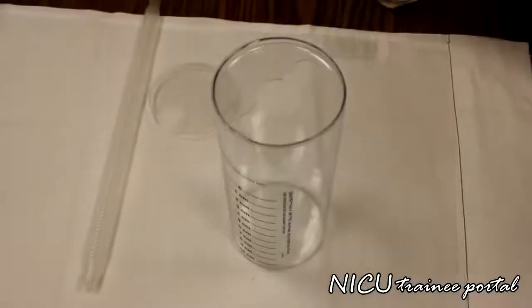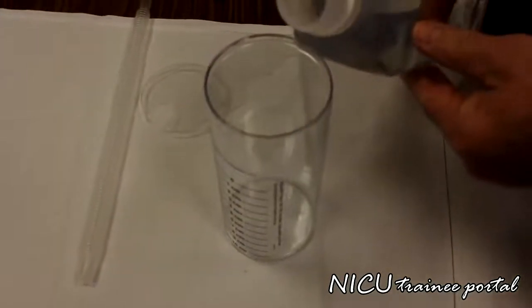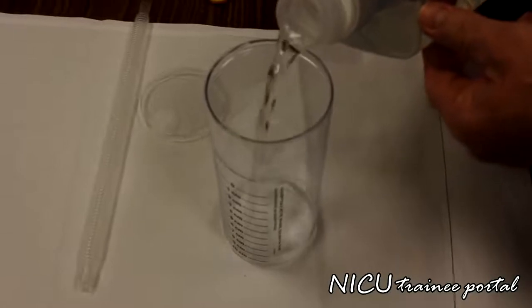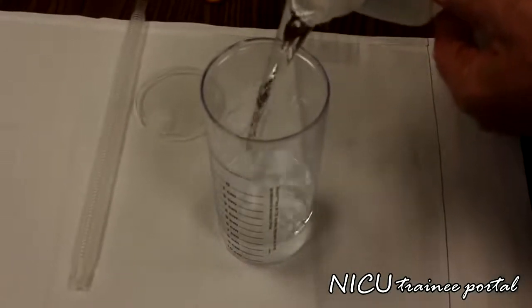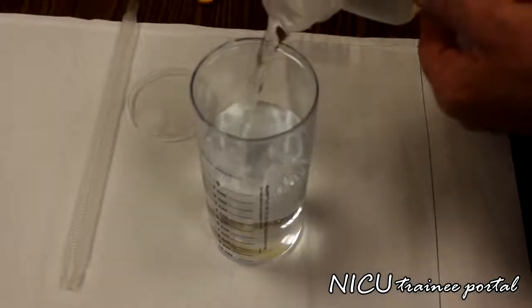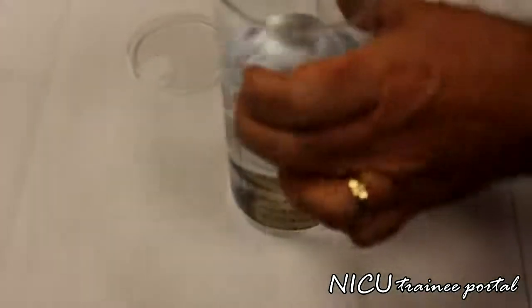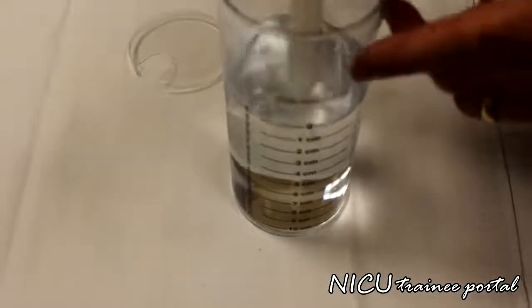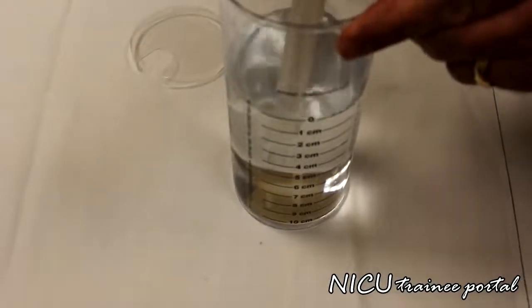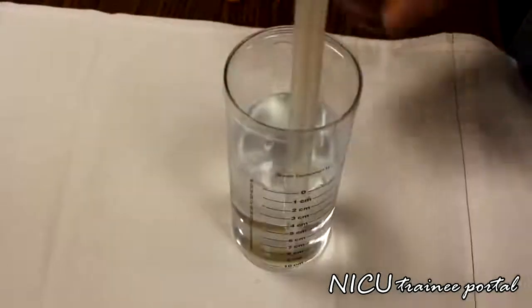Okay. Next thing is to fill the CPAP water chamber up to the 0 on the label with acetic acid of 0.25%. There we go. And then we put our hose in up to the level of CPAP we want. In this setting it's going to be on 5 centimeters. Then we put the little locking cap on, and then we slide over here and put it in a little holder.